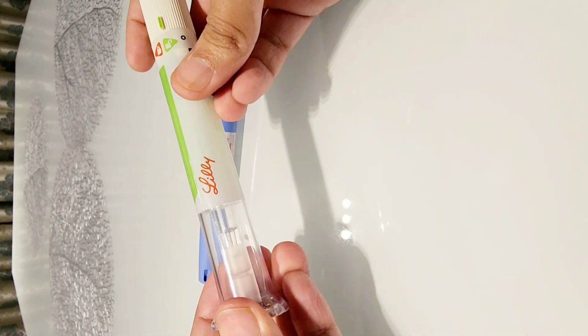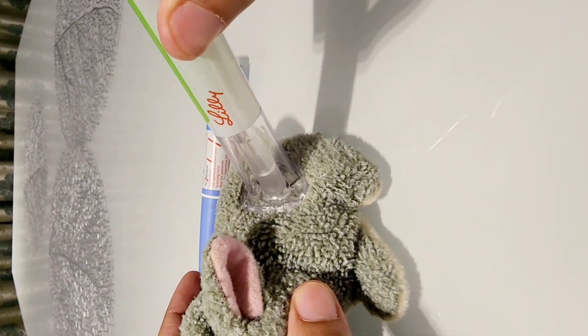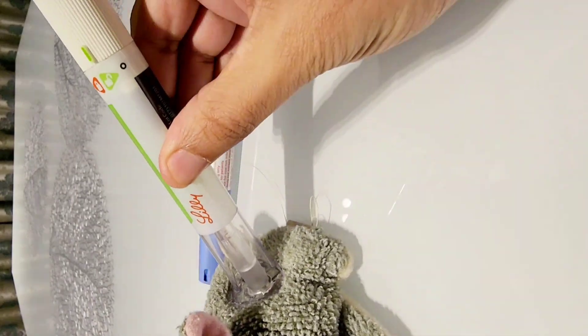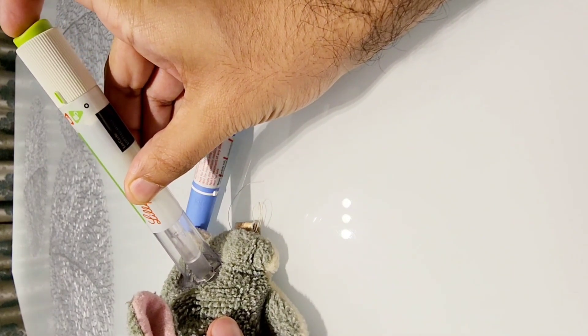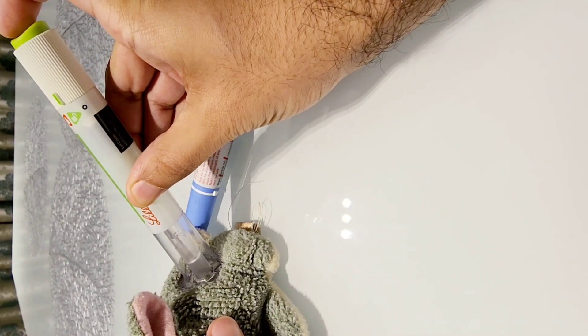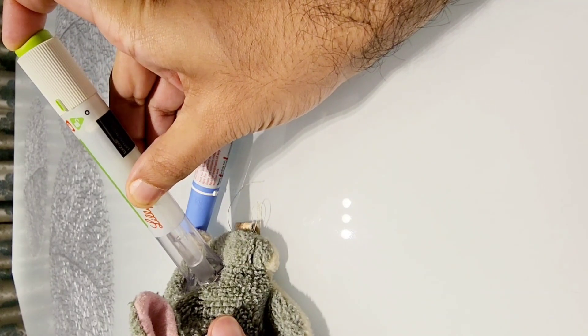You simply have to unlock it and let's take this dummy specimen here. You will just put some pressure on your flat part of tummy or thighs or arms where there shouldn't be muscle. It should be a fatty area and we push one click.